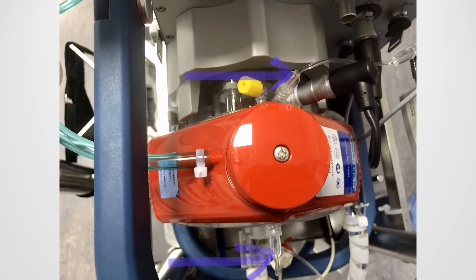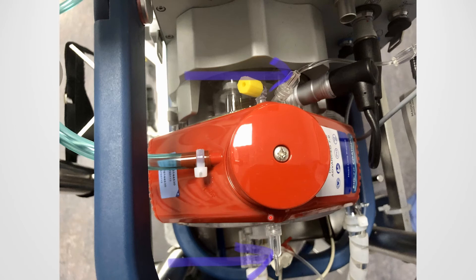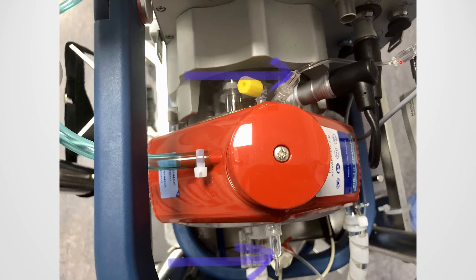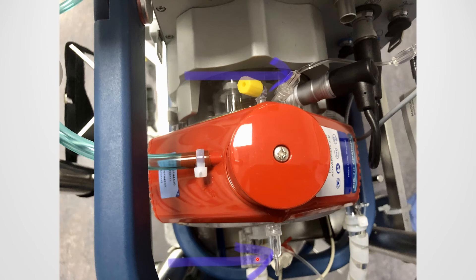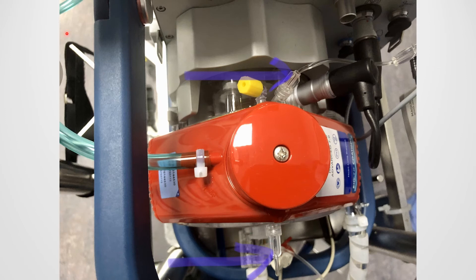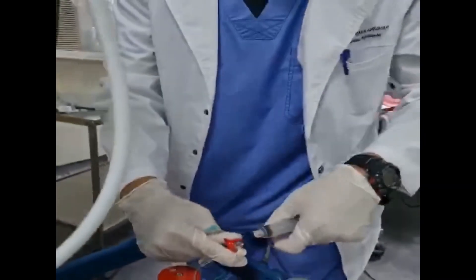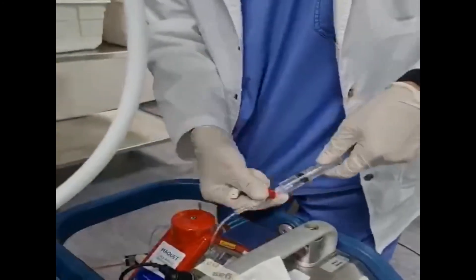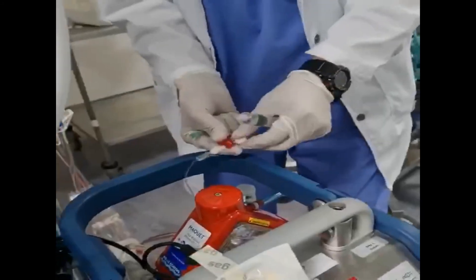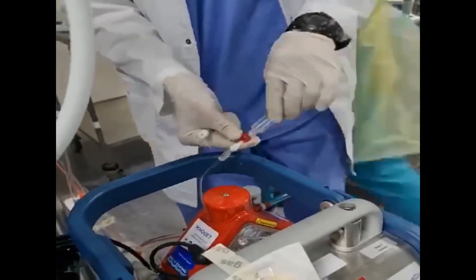This picture shows two ports — the pre-oxygenator and the post-oxygenator. From the pre-oxygenator side, blood can be aspirated and de-airing performed; from the post-oxygenator port as well. This demonstration shows how to aspirate air from the pre-oxygenator side, which can be done during circuit priming and also while ECMO is running. The same technique applies to the post-oxygenator side.